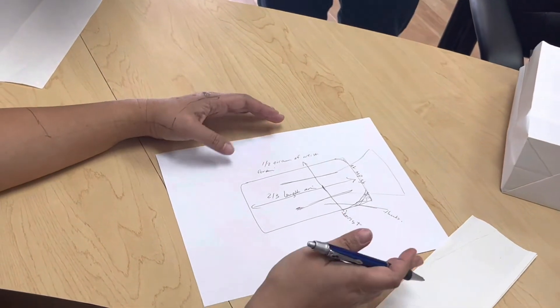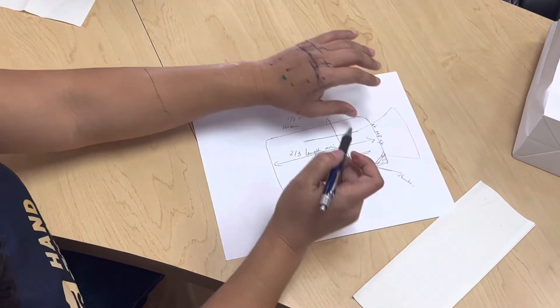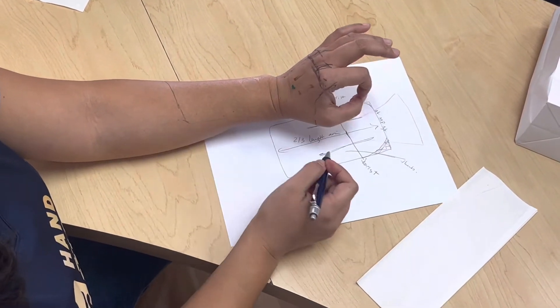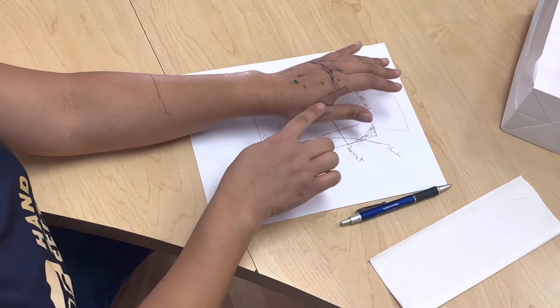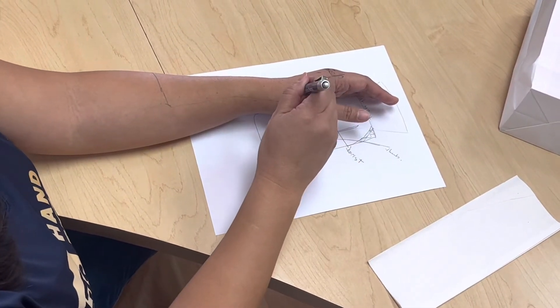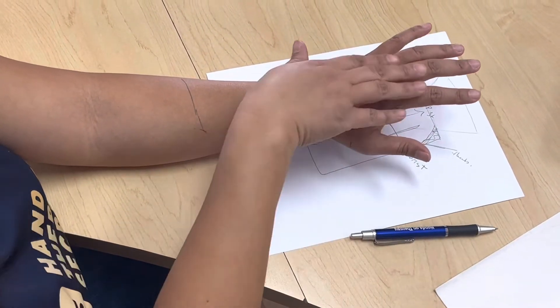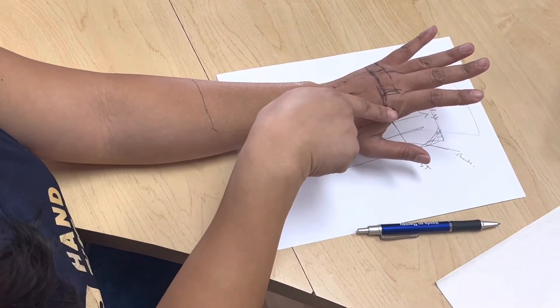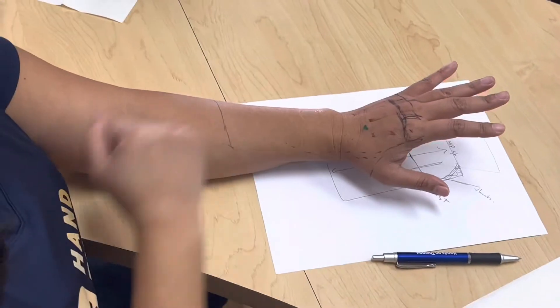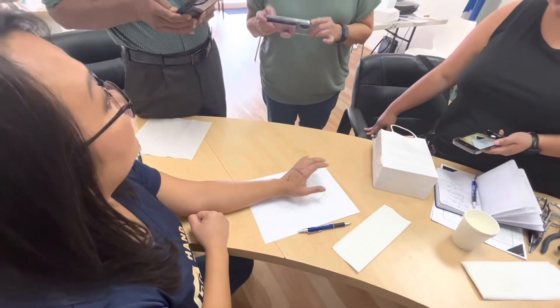If you're making it just for the hand because it's not a nerve issue, you don't need to make it wide enough for the thumb — you're just making it for the extensor tendons of the fingers.